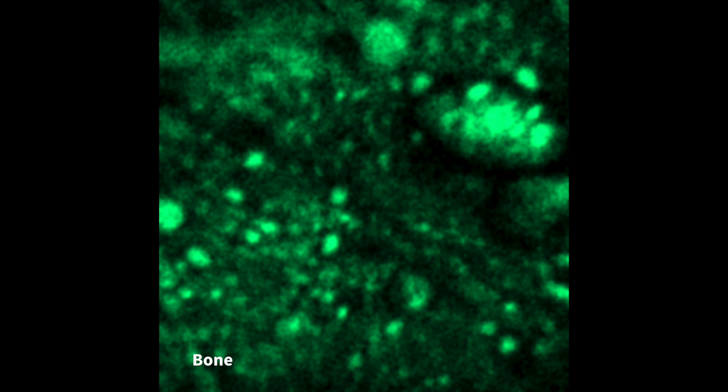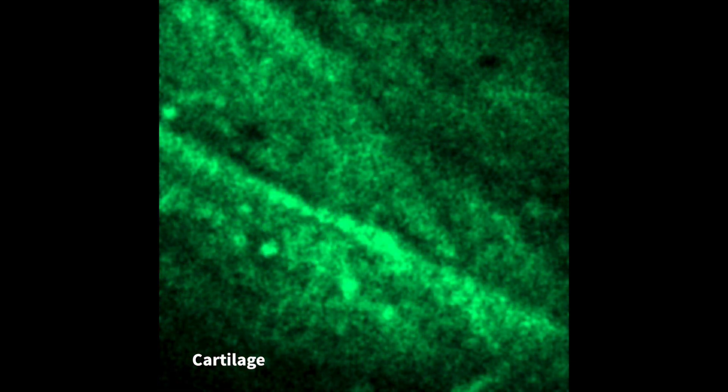Not only can you image muscle — you can image skin, bone, and cartilage. We have just begun to explore the applications, which is quite an exciting development that we intend to pursue in the future.